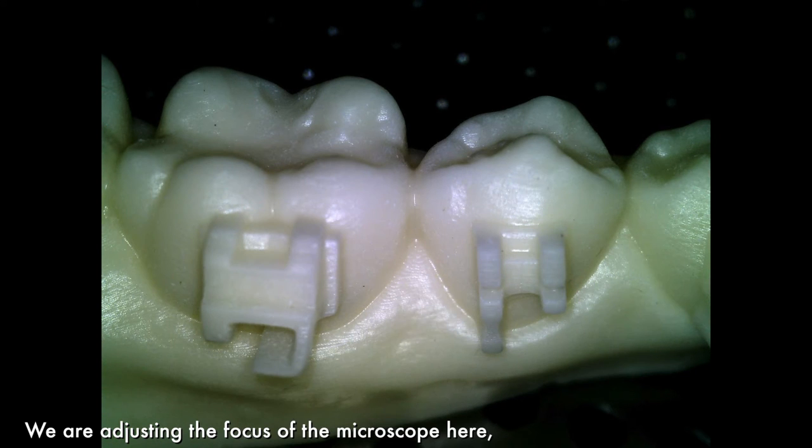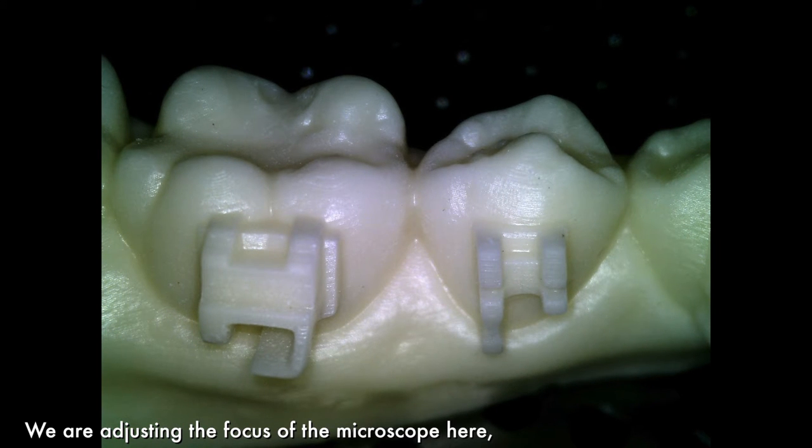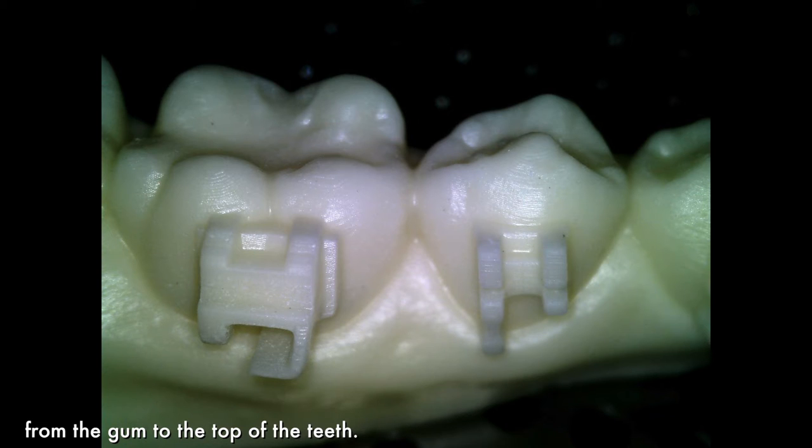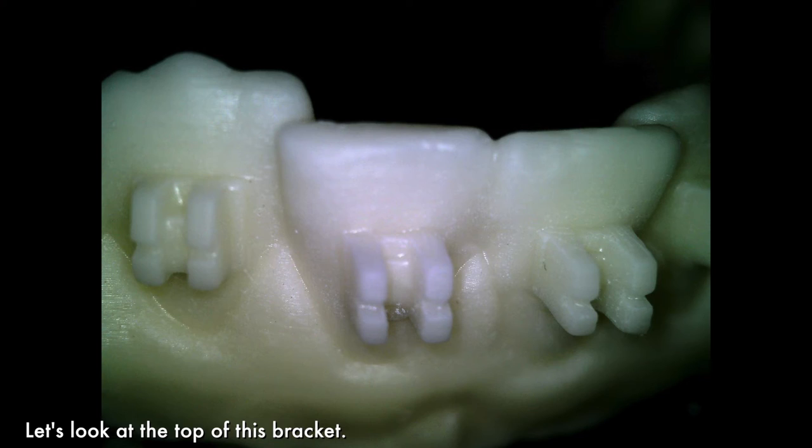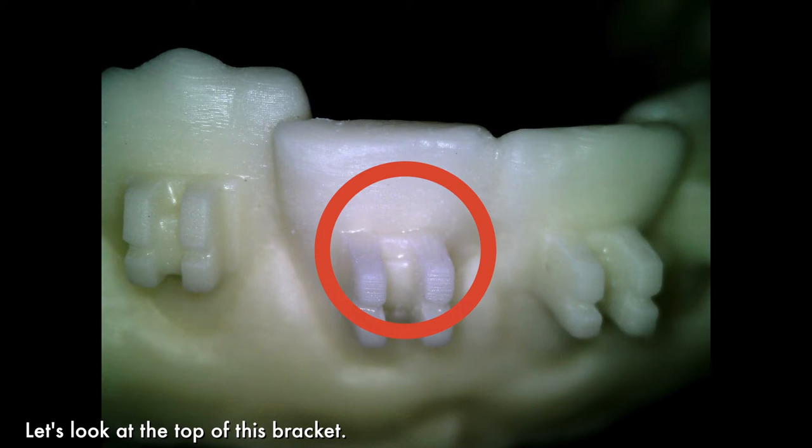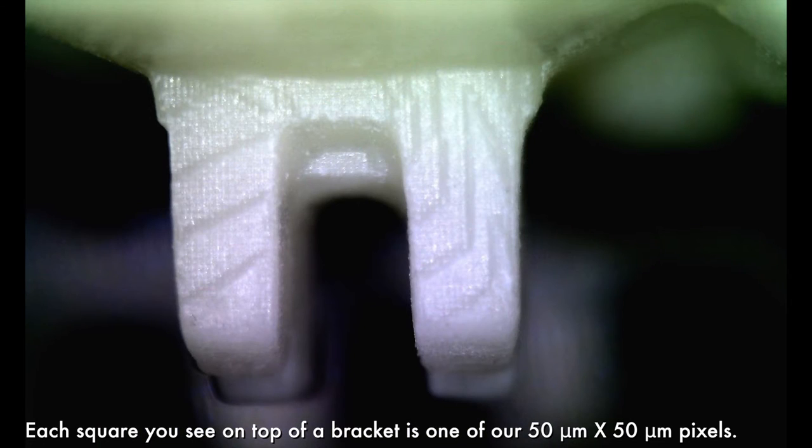Let's inspect this arch with a microscope. We are adjusting the focus of the microscope here from the gum to the top of the teeth. This is precision you are seeing here.